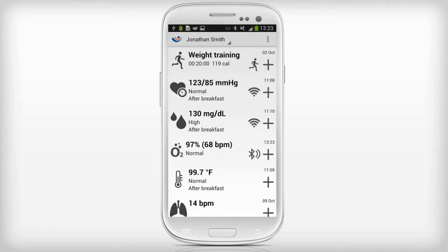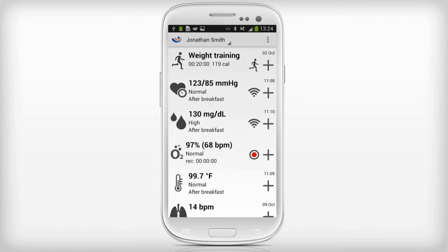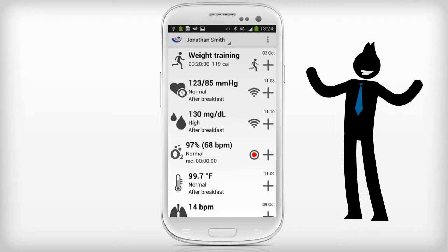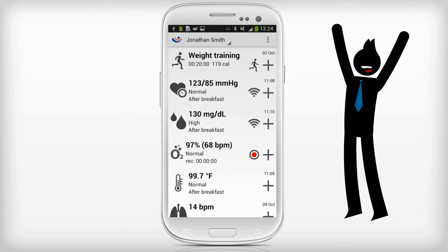The pulse oximeter monitor has been added to the screen. Since the sensor is activated, it automatically connects to MyFitness Companion and starts recording your data. You have successfully configured a monitor.